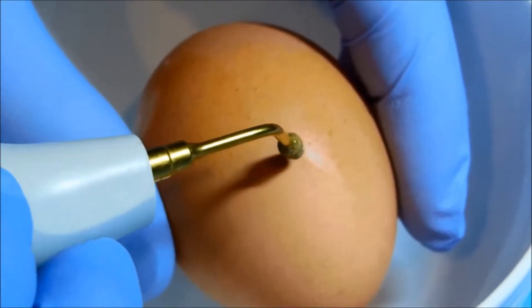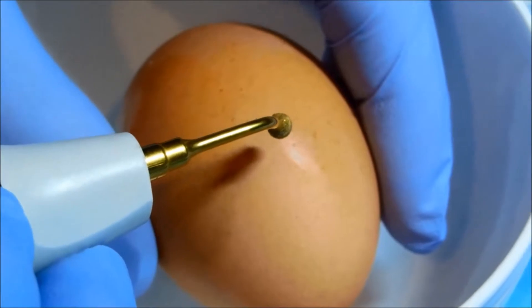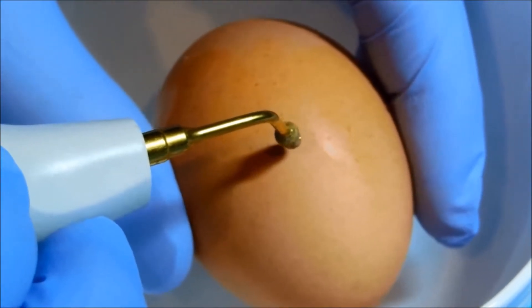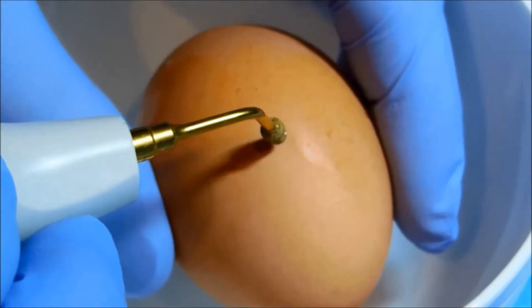This is the piezo surgery machine, and one of the most important applications of this machine is its use in sinus elevation procedures.